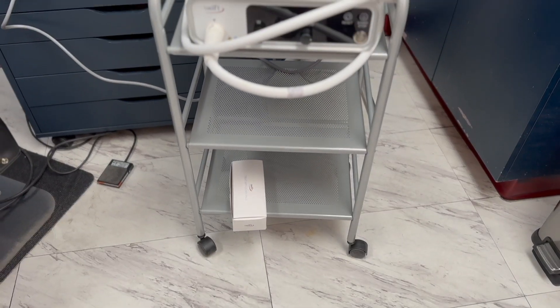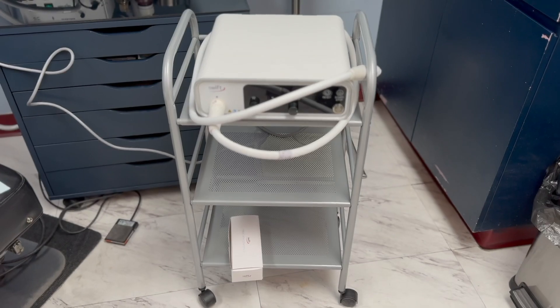Hi, I'm Andrew Springer, chiropodist at The Foot Advantage in Oshawa. If you or a loved one are struggling with stubborn plantar warts, I think you'd be very interested in an innovative solution we offer, known as the Swift Microwave Generator. Here's how it works.